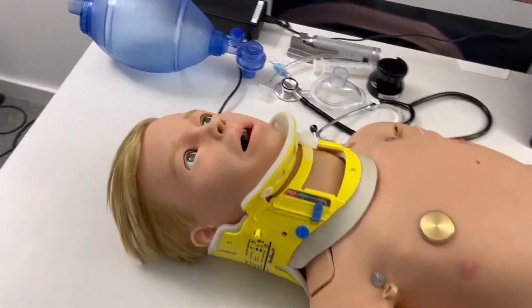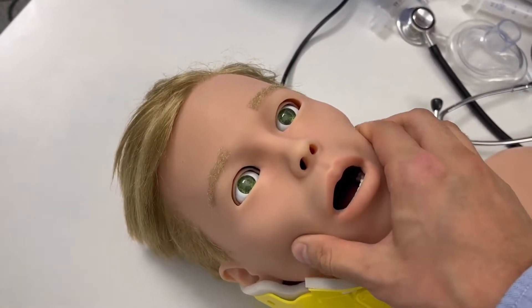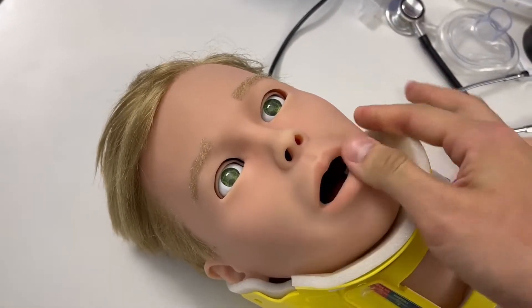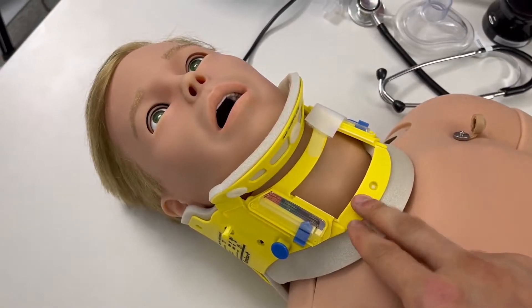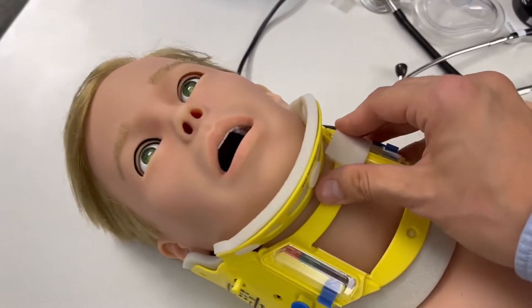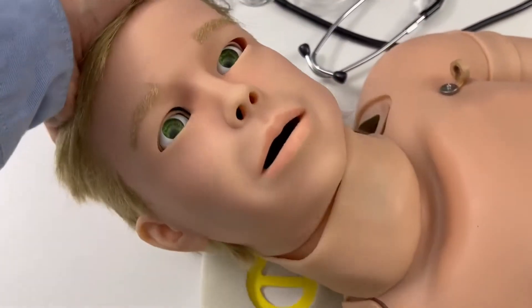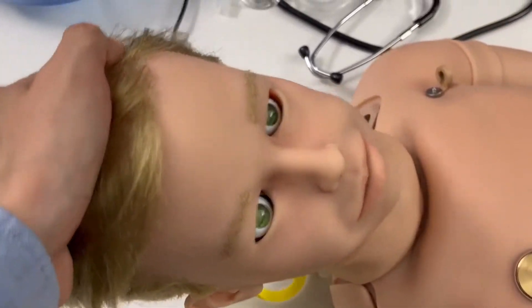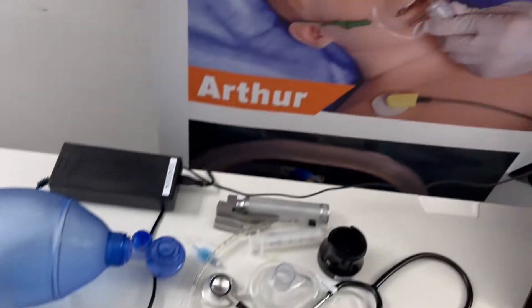So instantly the most noticeable is the new realistic face — I think it looks great with the hair and the eyebrows. As usual, high quality silicone, everything is nice and flexible including the neck, which is why it makes sense for us to transport them in a collar. As you can see, Arthur now has a full range of motion. The older face is still available as well.